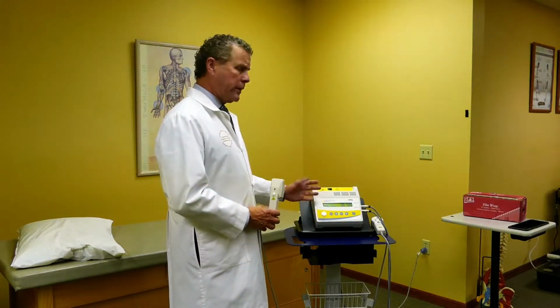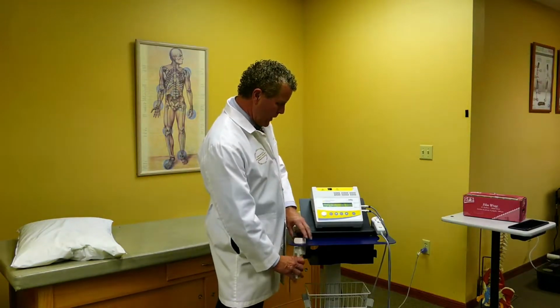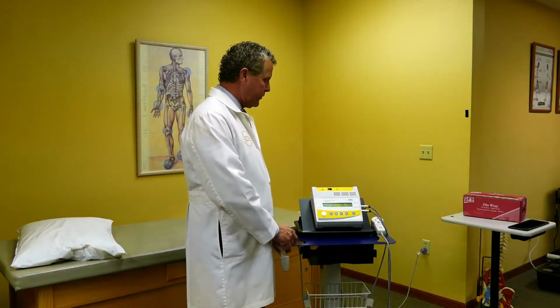A couple of clinical pearls I like to express right now: a lot of patients are looking at having a particular amount of relief. So how do we base how well the patient's going to respond?